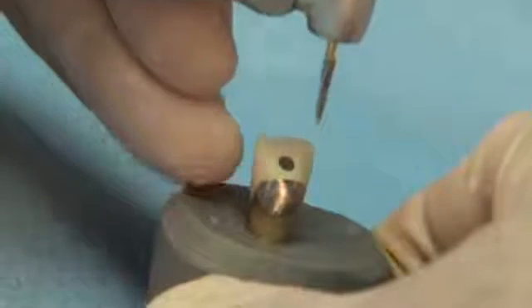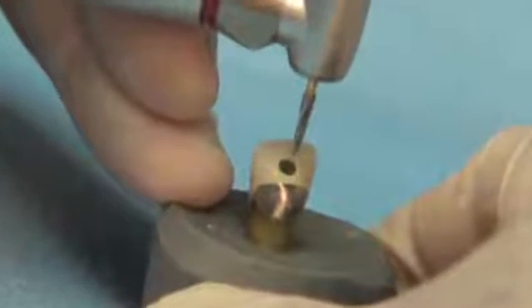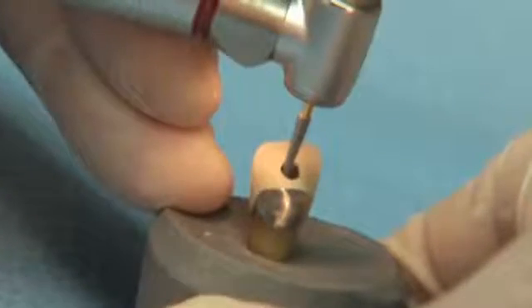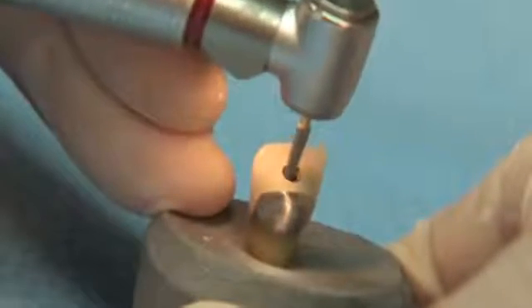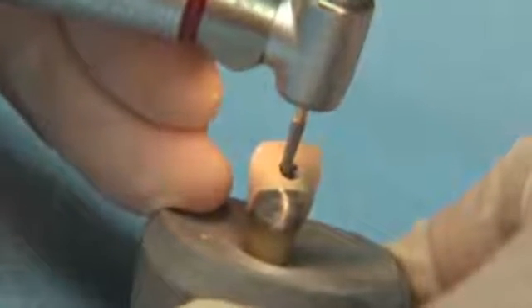These instruments are designed for lateral endodontic access enlargement without the risk of penetrating the pulp chamber floor. The Safe End Tip will prohibit the access from getting deeper but will allow for lateral expansion.